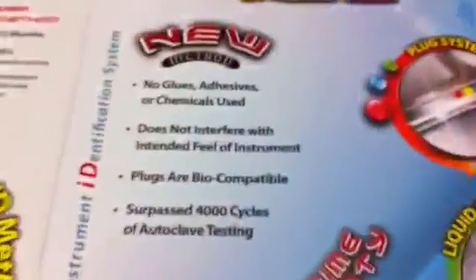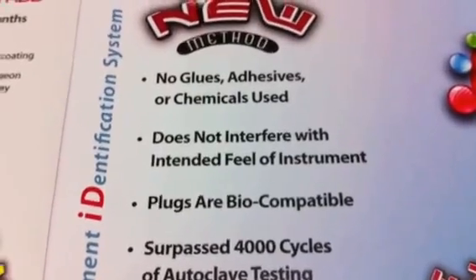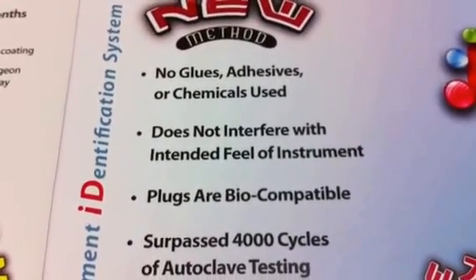There's a wide variety of colors to choose from, and the way the plug is placed into the instrument, there's no glues, no adhesives, no chemicals. So it's a really neat system that again is permanent.